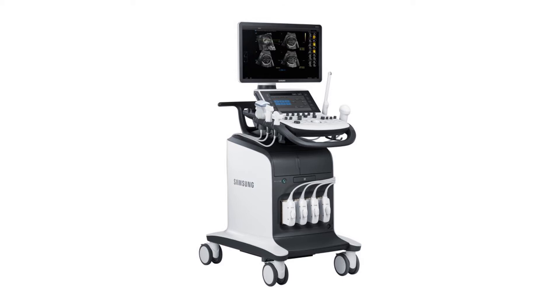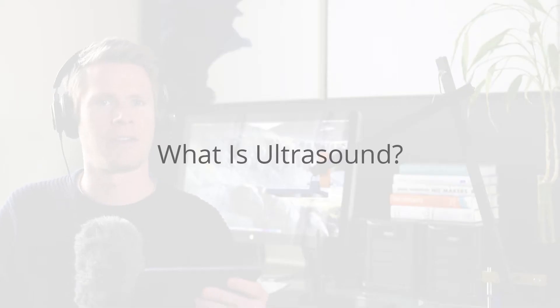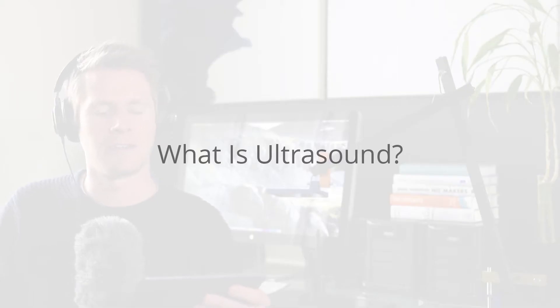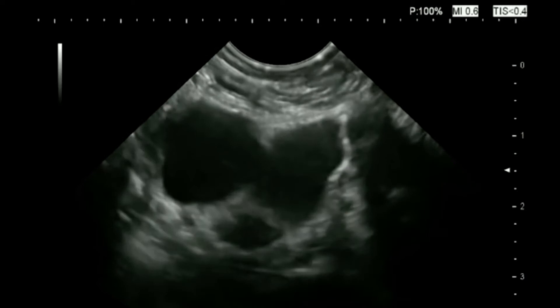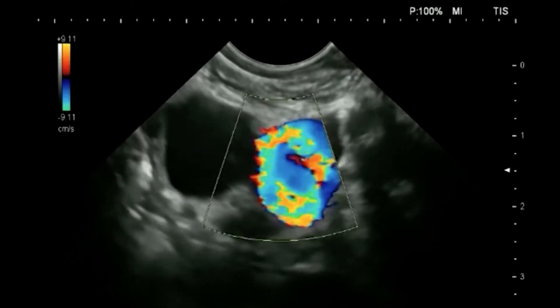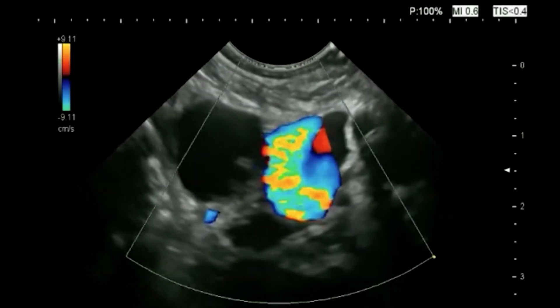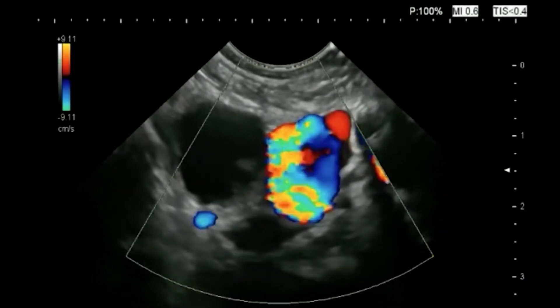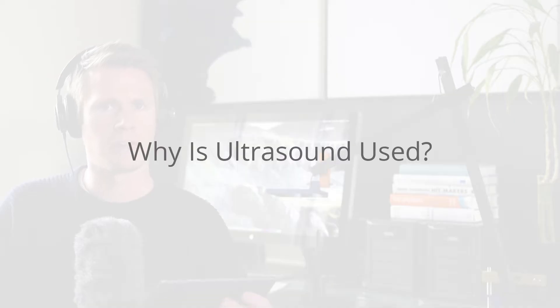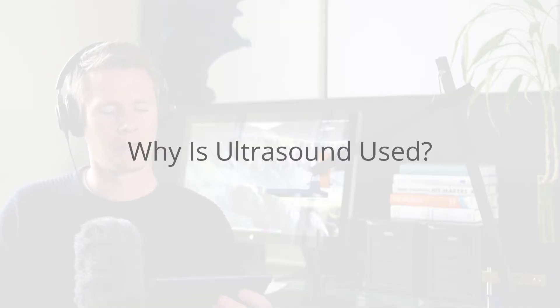Today's topic is ultrasound. Ultrasound is a medical imaging technique that uses high-frequency sound waves to produce real-time 2D and 3D views inside the body. Ultrasound is often used for the following purposes.